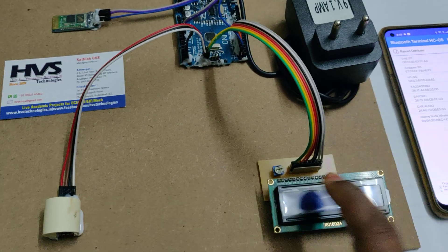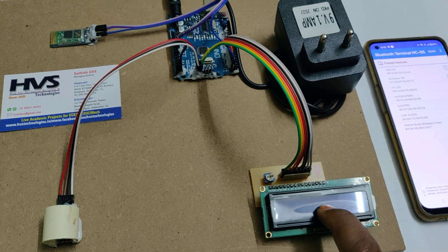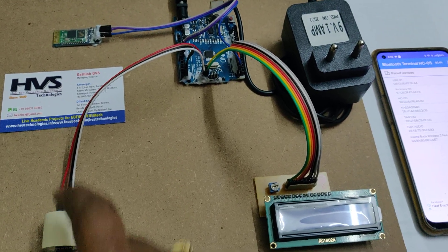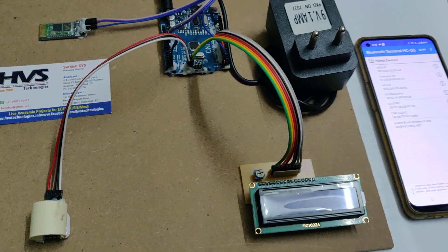The main input sensor is a customized sensor with a red LED and IR sensor. The LCD 16x2 is interfaced to pin number 2 through 7, and the I2C interface uses pins A4 and A5. The Bluetooth module uses pins 0 and 1 of the Arduino board.